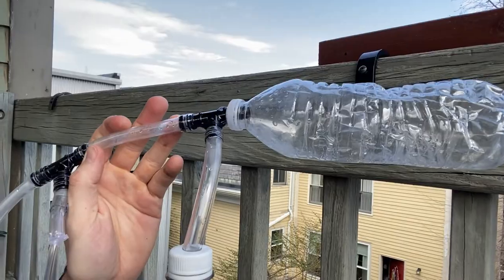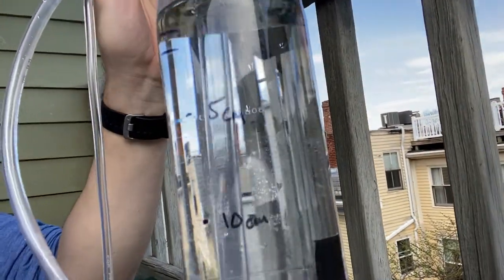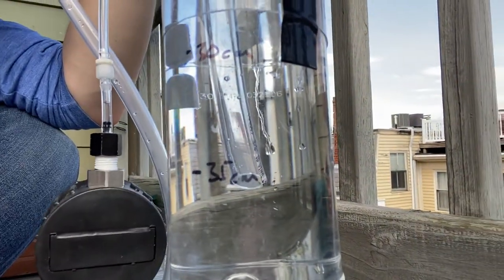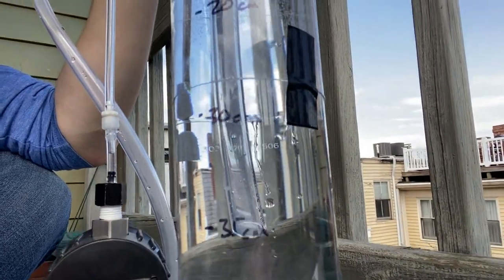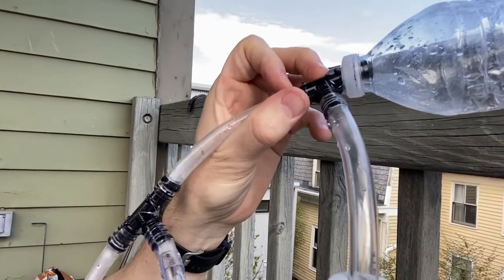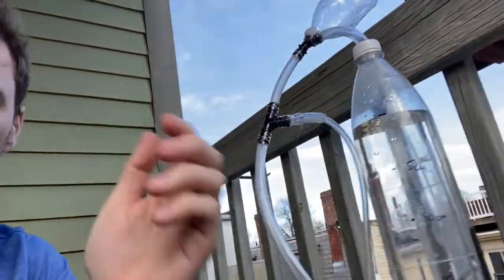For a quick close-up: there's the lung on a T-piece. The T-piece goes down inside the bottle and it's currently set to 35 centimeters, or 35 millibar of pressure. Air is put in through this connector, comes out through this connector, and will never go above 35 millibar.